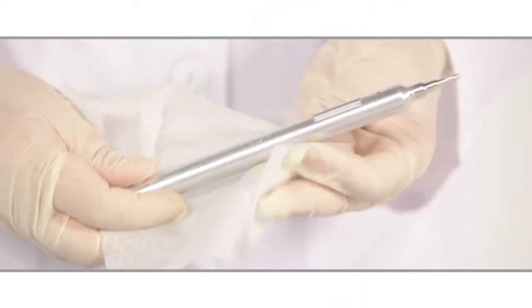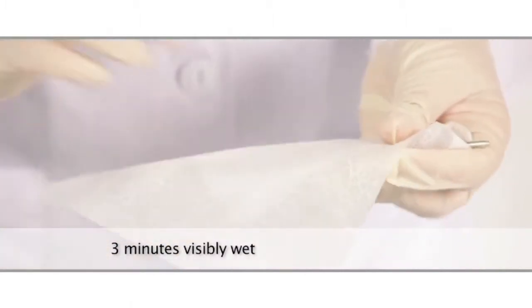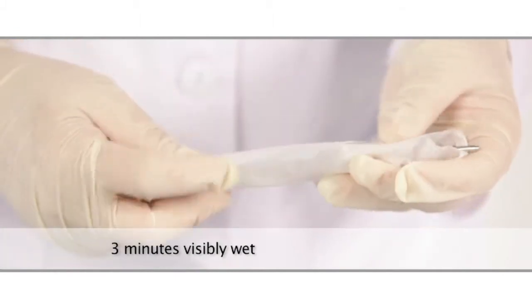Wipe the exterior surfaces of the insert with a Cavi wipe towelette or equivalent. The surface of the insert should remain visibly wet for three minutes.